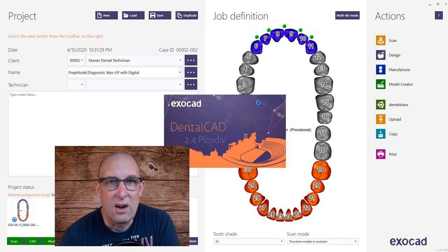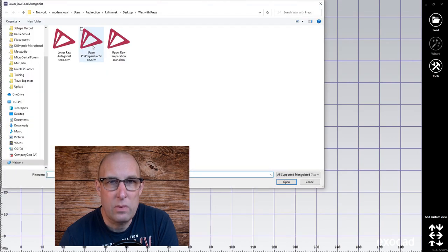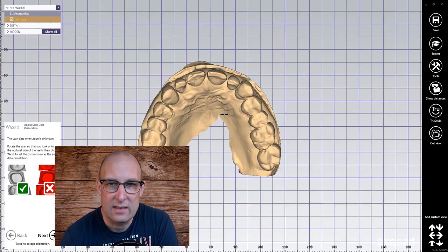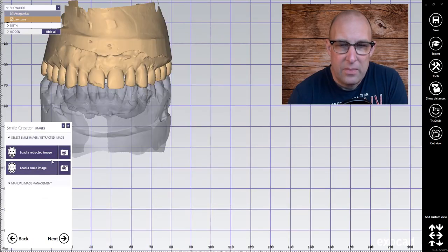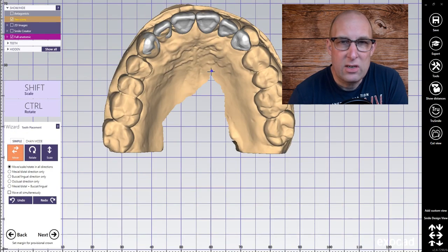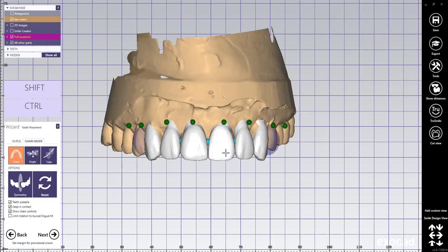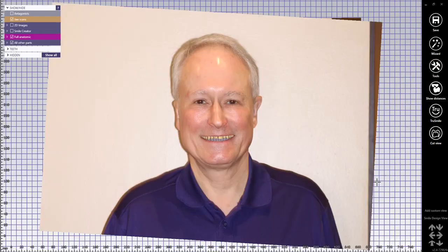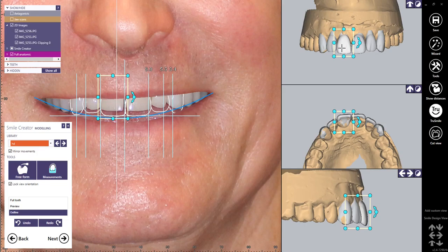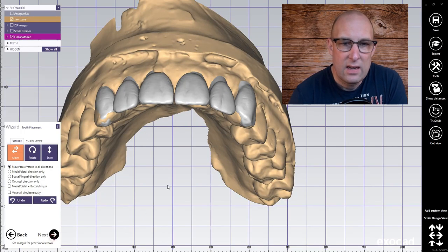The CAD module is going to load now and I'm ready to import the scans here. Notice that I'm importing the pre-preparation scan and the antagonist — they're in occlusion. I'm picking the top. In the smile creator I'm importing the images. I have a different video for the smile creator, but here in the chain mode I'm creating the new smile. I can double check it in the smile creator. Notice I have the mirror tool on, so if I click one tooth the other one is moving as well in every direction. I press next.